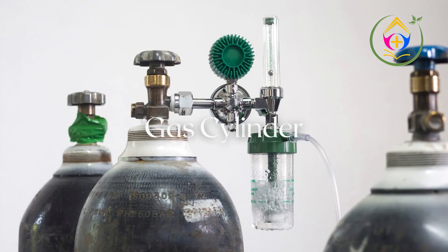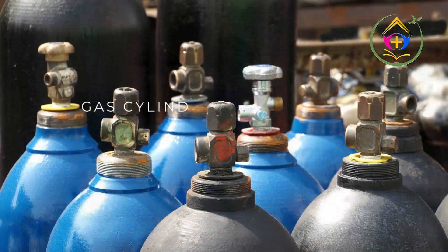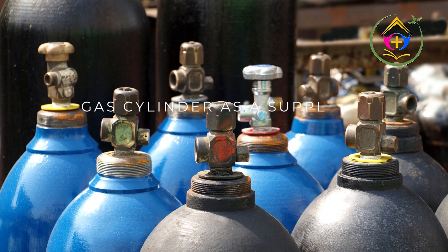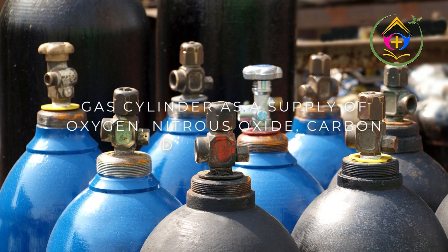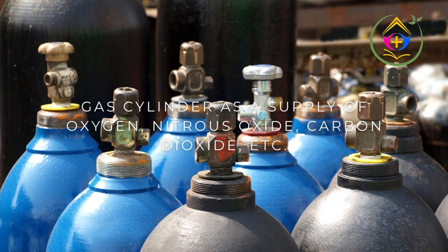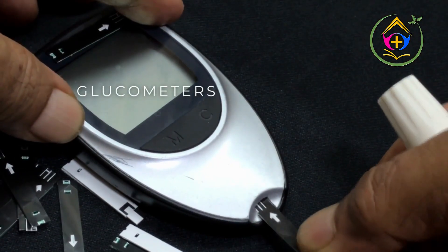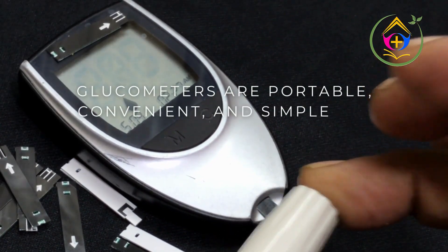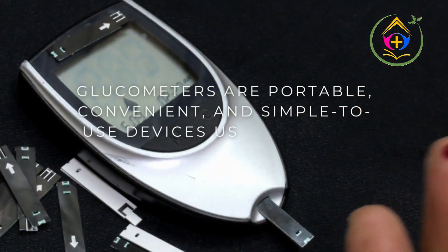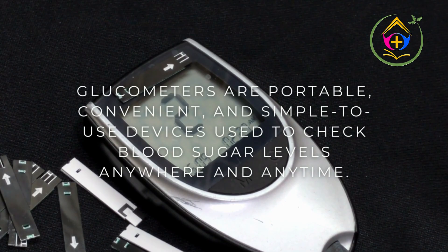Gas Cylinder: a supply of oxygen, nitrous oxide, carbon dioxide, etc. Glucometer: glucometers are portable, convenient, and simple to use devices used to check blood sugar levels anywhere and anytime.